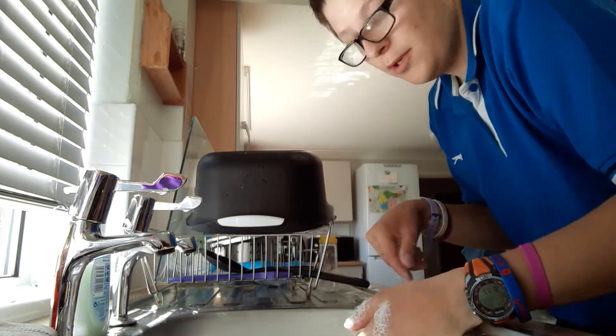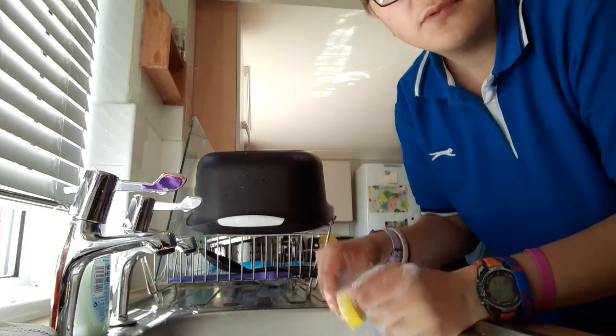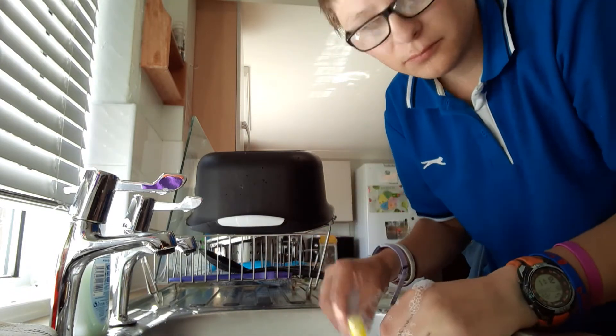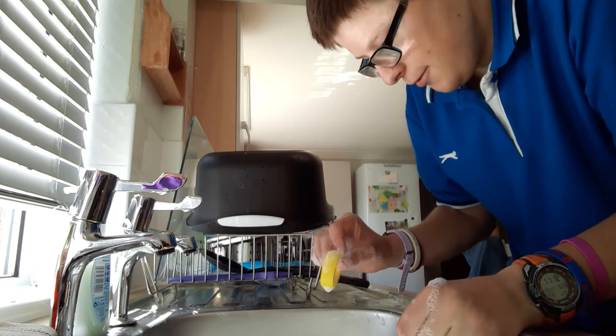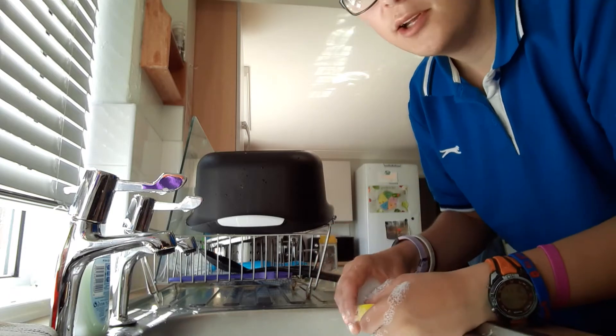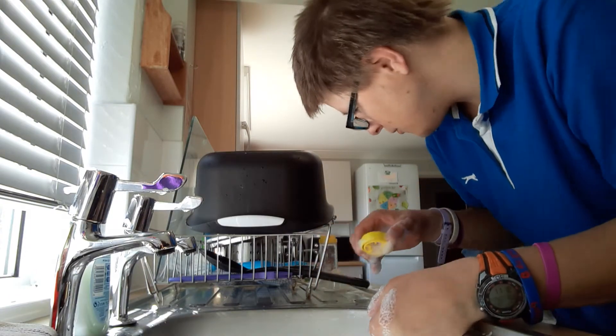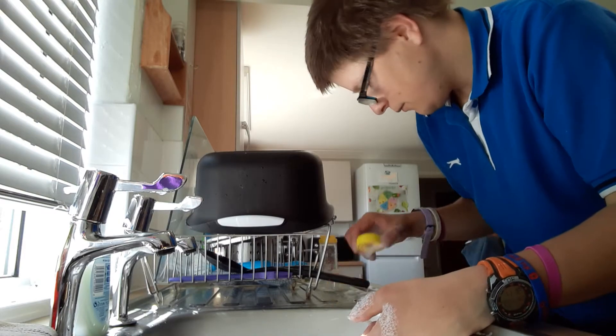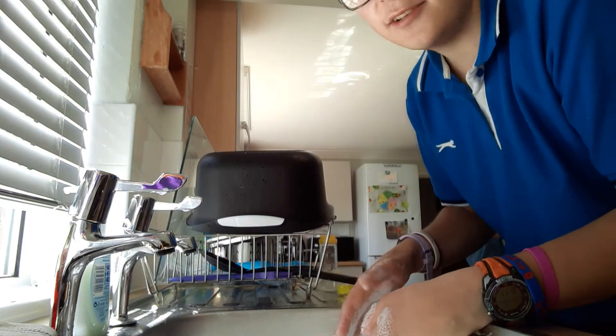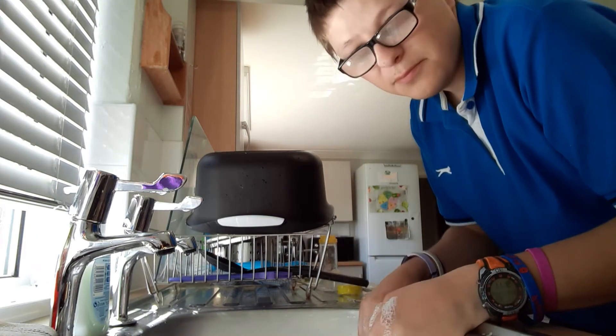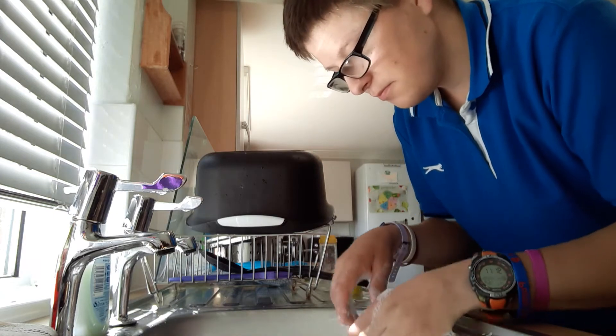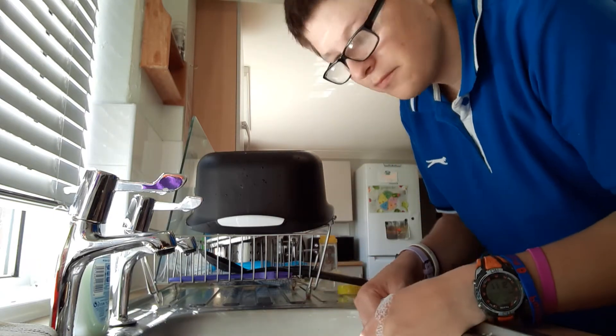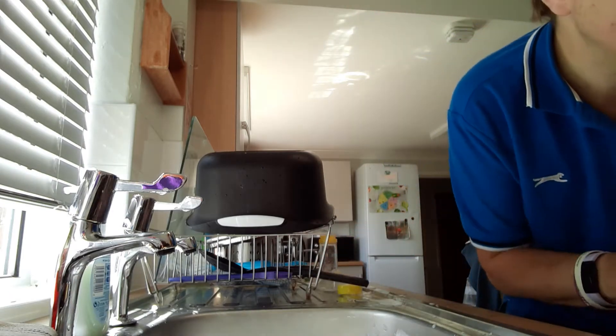When you're cleaning them, leave them to drip dry. Do not dry them with a towel or cloth because that will increase the static. And you don't want static because when you've got static in your spacer device, the medication sticks to the spacer and doesn't get into your lungs where it's needed the most.